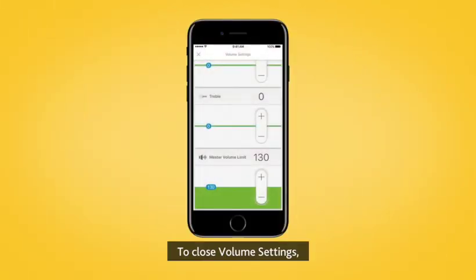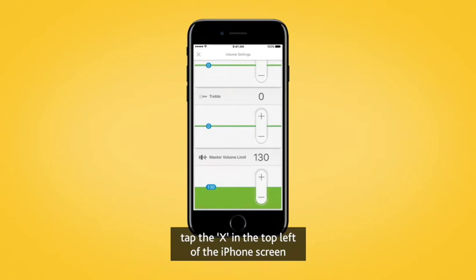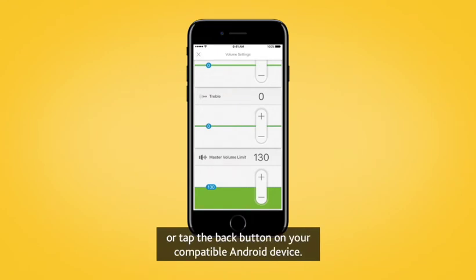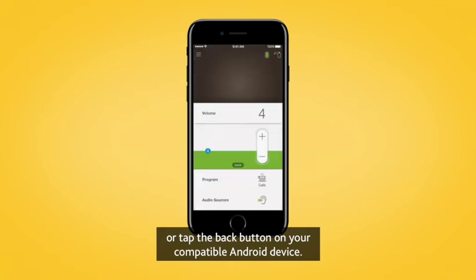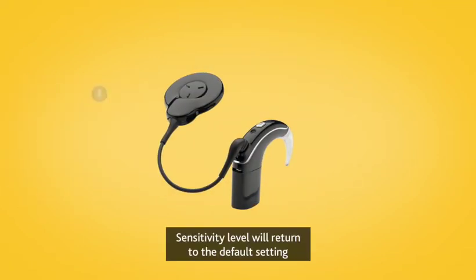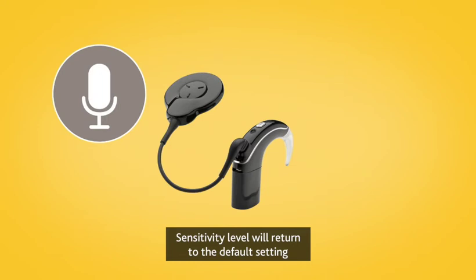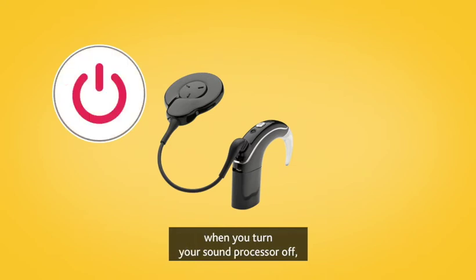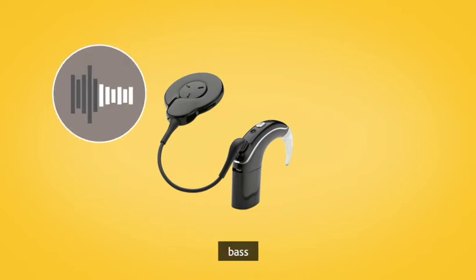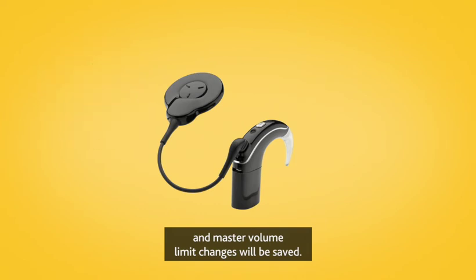To close volume settings, tap the X in the top left of the iPhone screen, or tap the back button on your compatible Android device. Sensitivity level will return to the default setting when you turn your sound processor off, whereas treble, bass, and master volume limit changes will be saved.